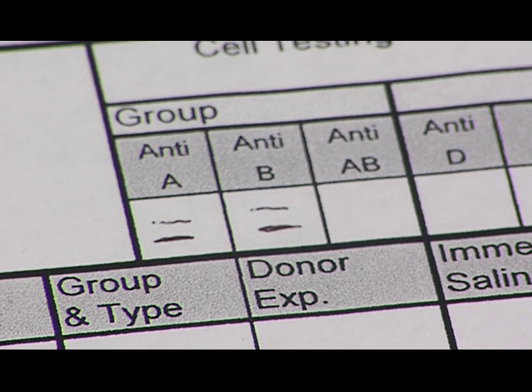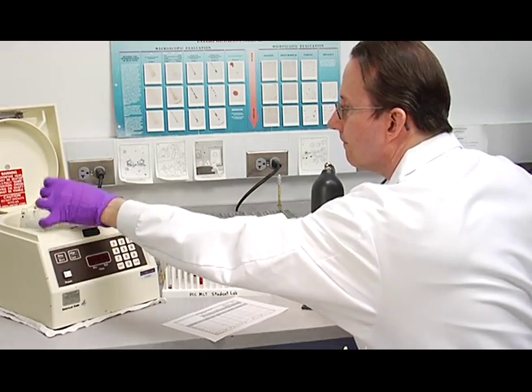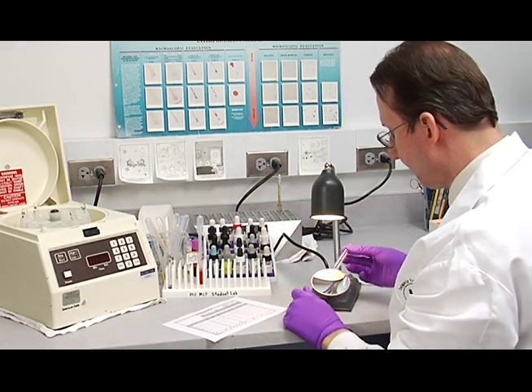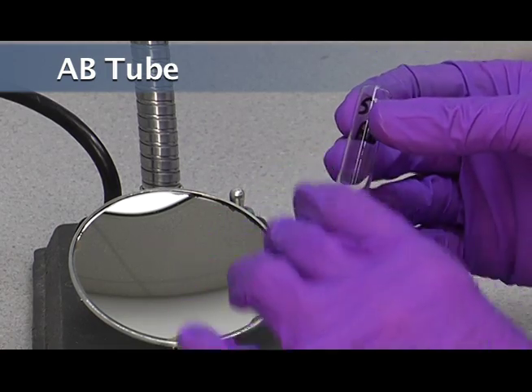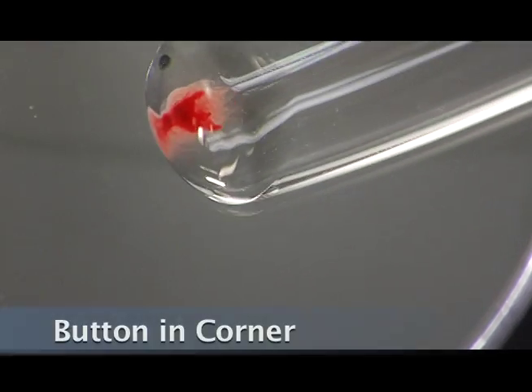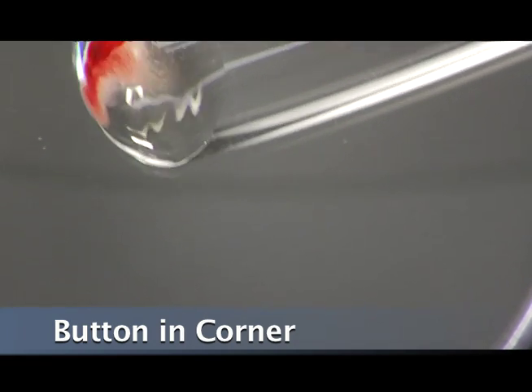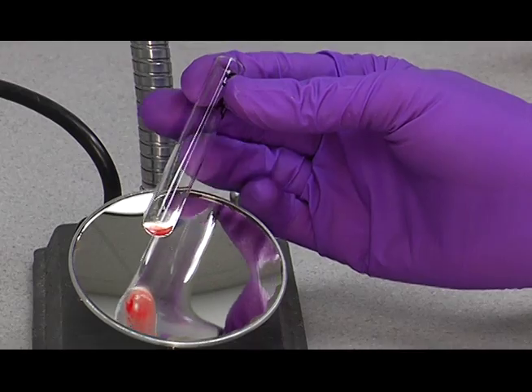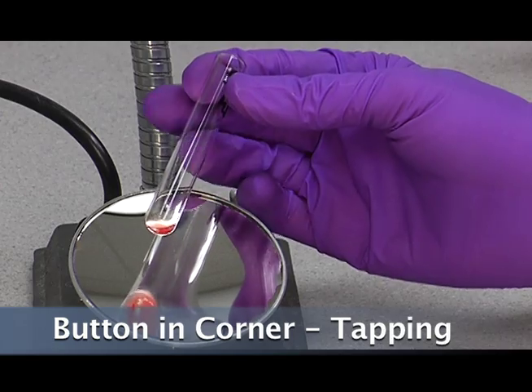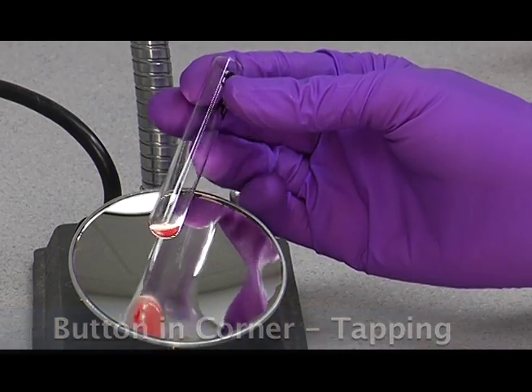Now we'll go on to the third one, and I'll show you a third technique, a slight modification of the last one that I showed you. Again, we're going to have the button just rolled up a little bit into the corner. Then you just want to gently brush the bottom of the tube with your middle finger or your ring finger. And you focus on the button.